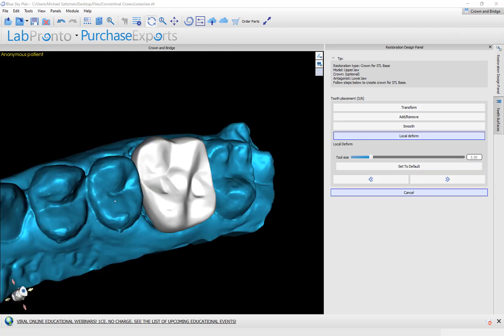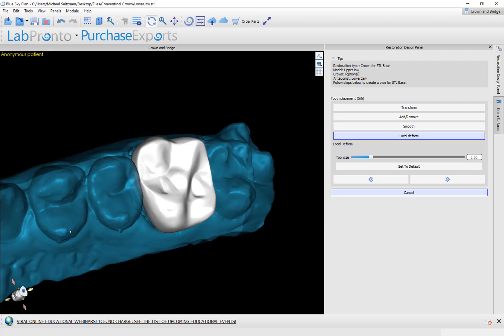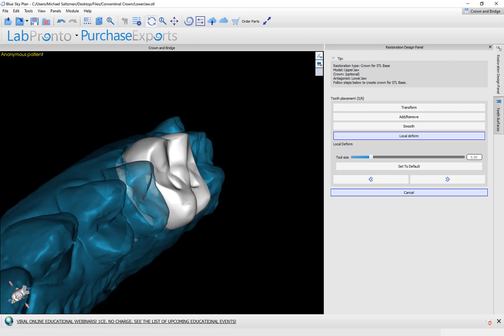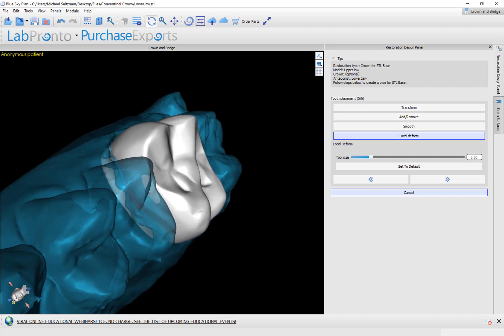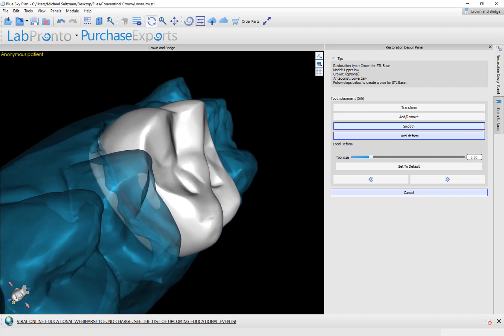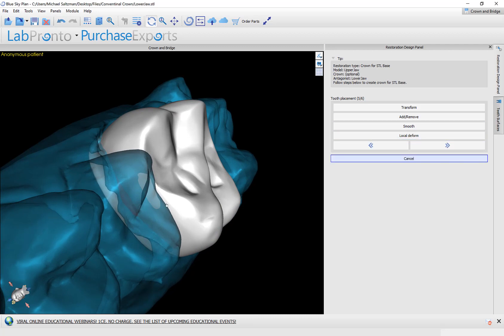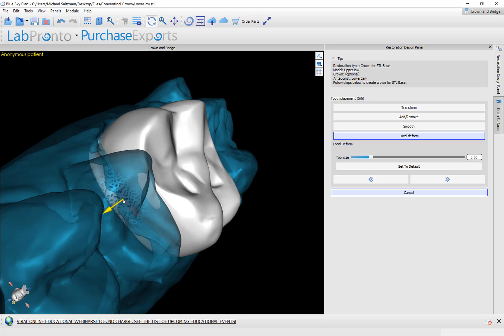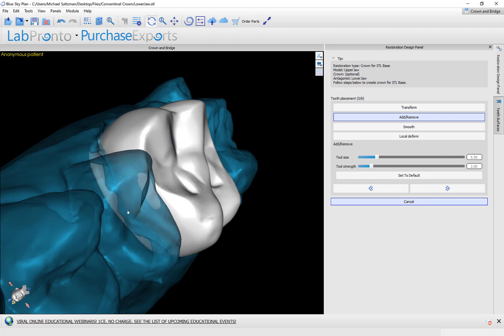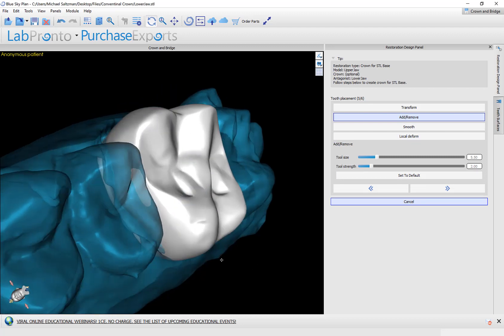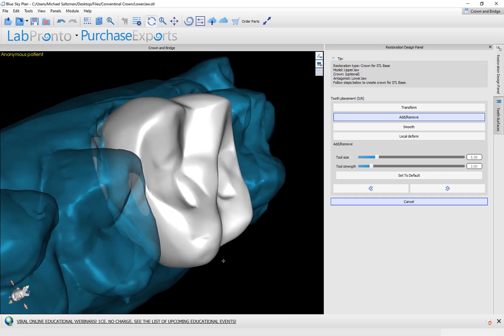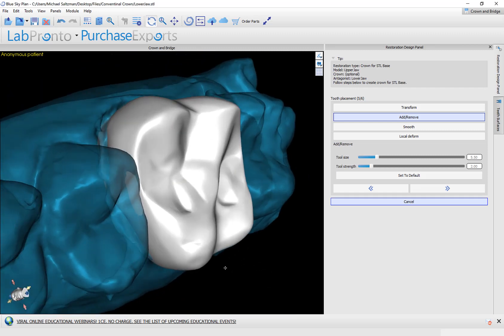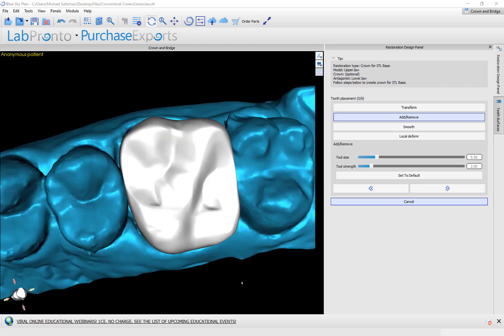We also have the ability to right-click on a model and click toggle transparency. So for example, if we wanted to adjust and take care of the minimal thickness violation that we could see right here, I could now go to local deform, for example, and then use the tool to take care of that. Or I could add a bit of material, hold down the shift key, my left mouse button, and take care of it. And if we wouldn't have taken care of it, then the software automatically, when it created the base of the crown, it would have made sure that we had the minimal thickness of material that was there. We can finish up the process by clicking next.